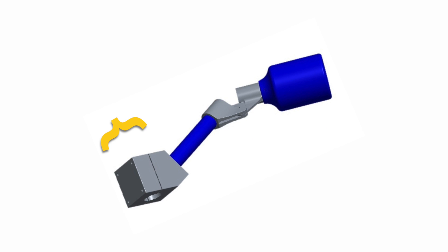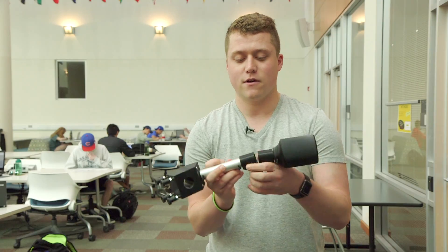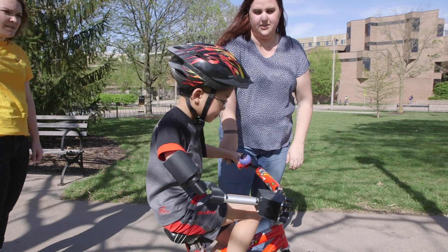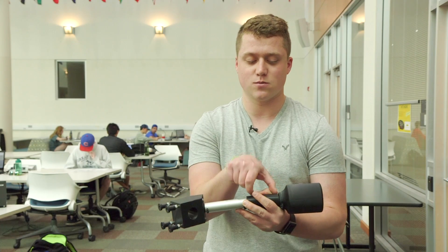This portion is like a wrist, so this connects to the bike, and this is like a forearm followed by an elbow. This is made out of 3D printed material of ABS plastic for this portion, this portion, this portion.